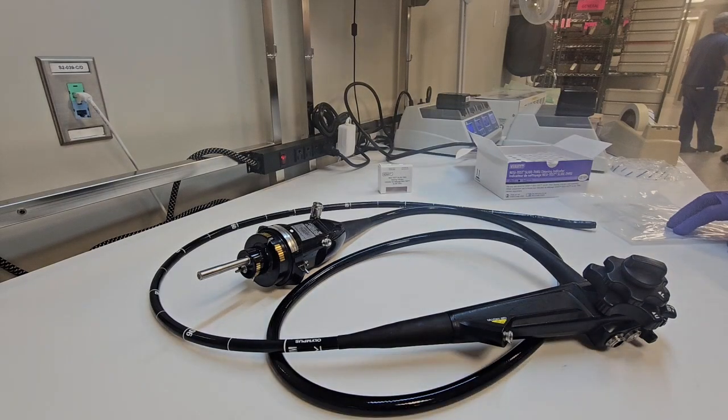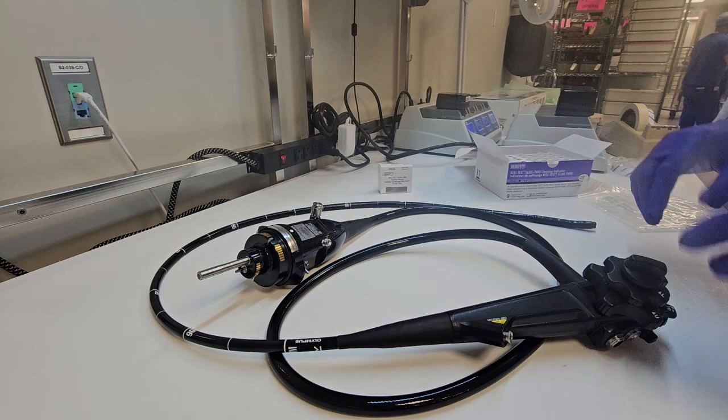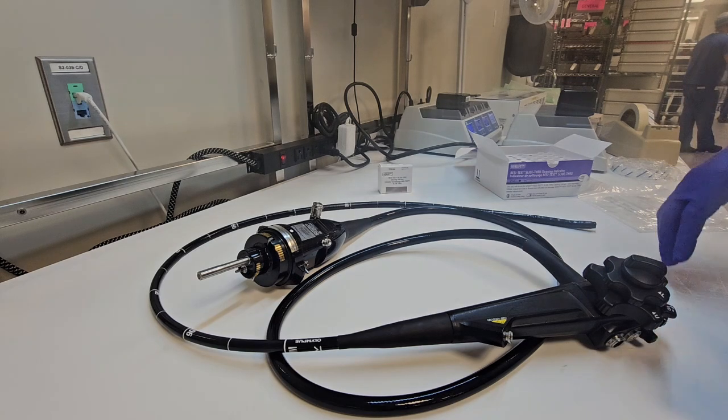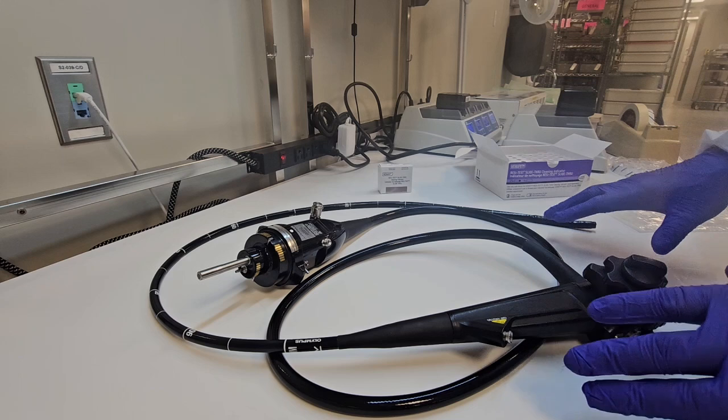What's going on guys? Welcome back to WDYDCSP. What do you do as a central sterile processor? I'm going to show you how to do cleaning verification on a GI scope.